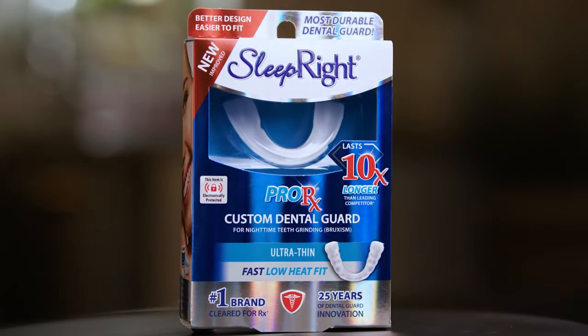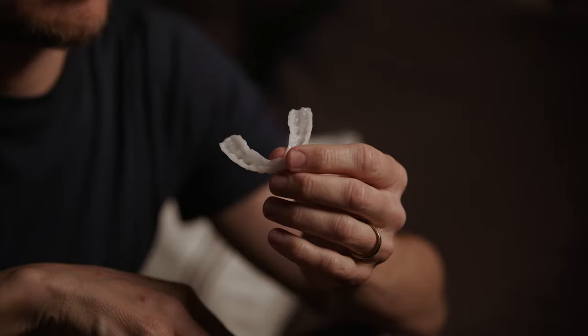The Sleep Right Pro-Rx Custom Dental Guard protects your teeth from the harmful effects of clenching and grinding.